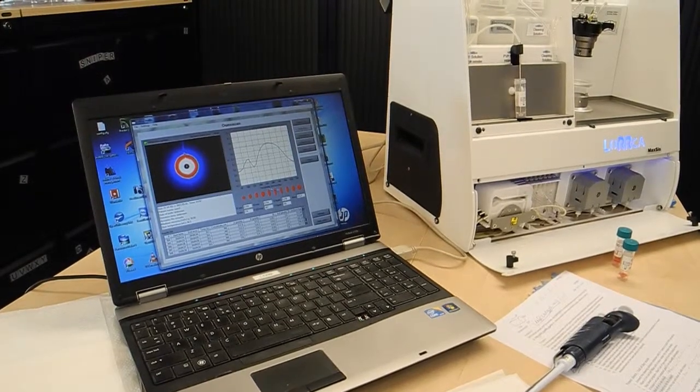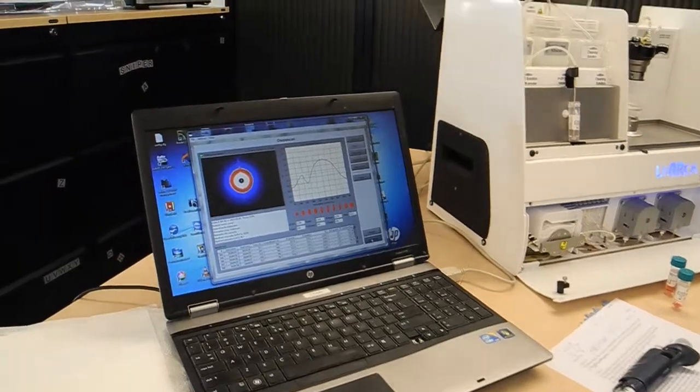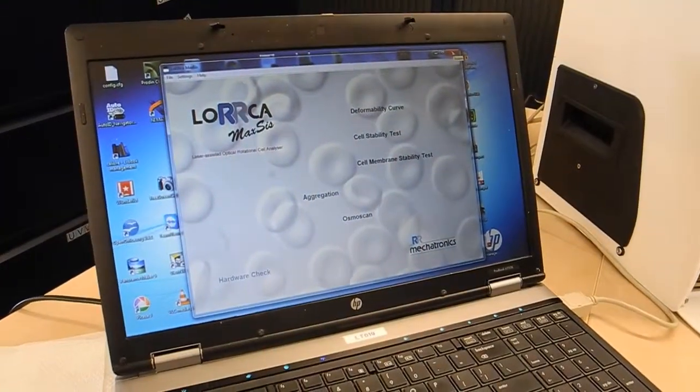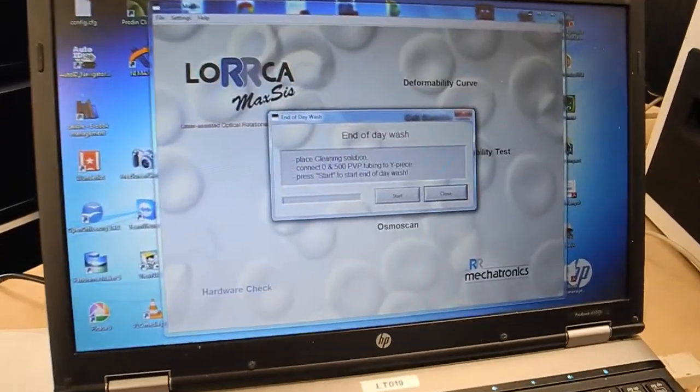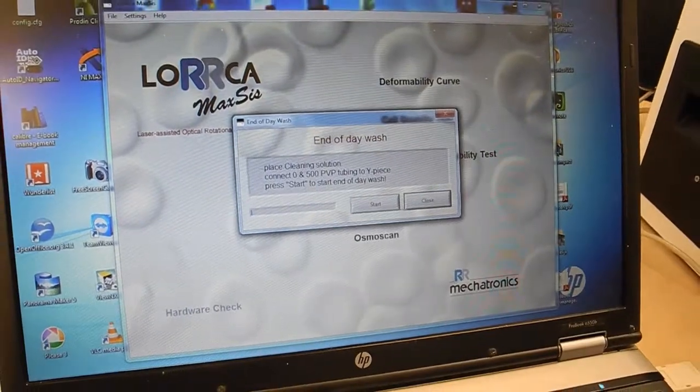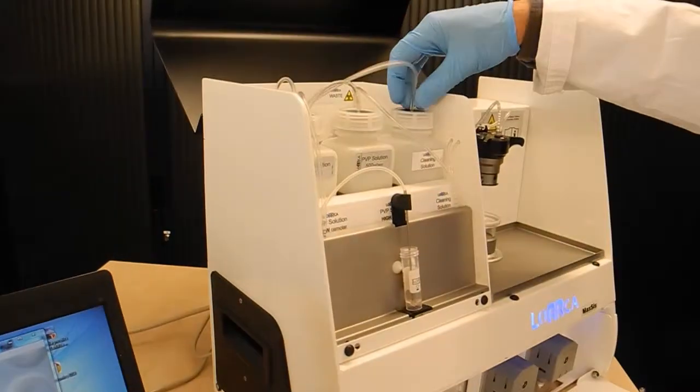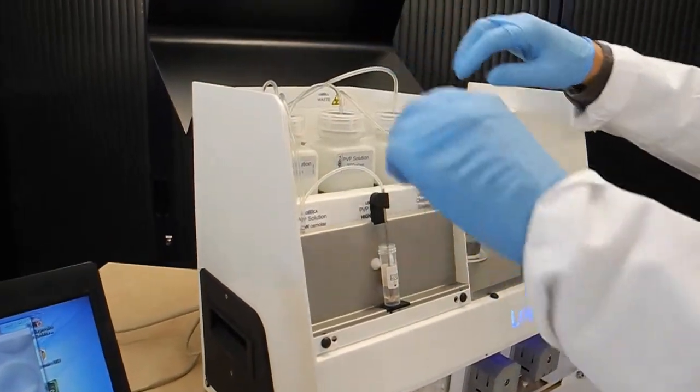We're ready, we're done. We want to shut down. We go to the main menu and try to close this window, but then there are some questions. Place the cleaning solution and connect the two PVP lines.